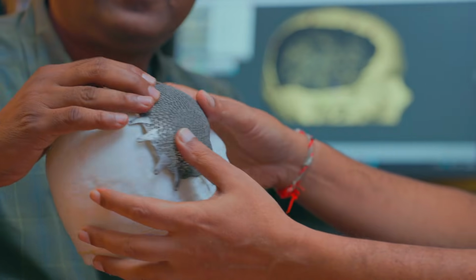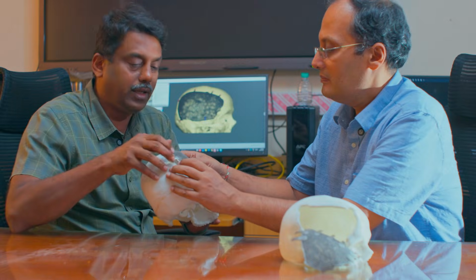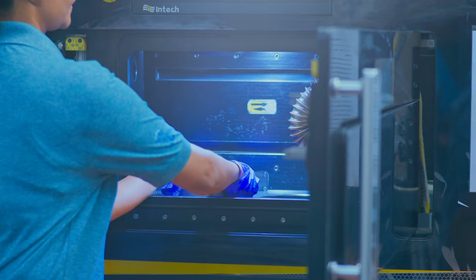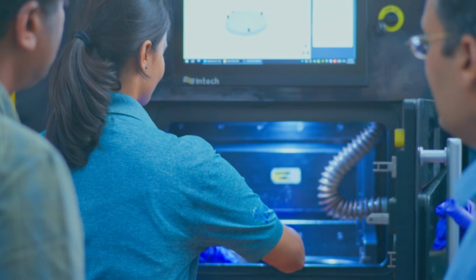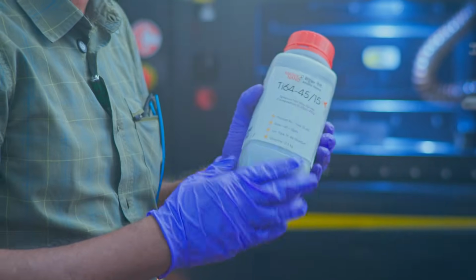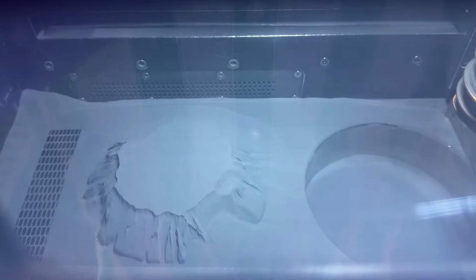The implant is built by laser powder bed fusion, a metal 3D printing process. In this process, a high precision laser melts biocompatible, lightweight, toughened titanium alloy, titanium 6 aluminum 4 vanadium, layer by layer. Every strut, every pore, every internal feature is controlled at the micro scale.